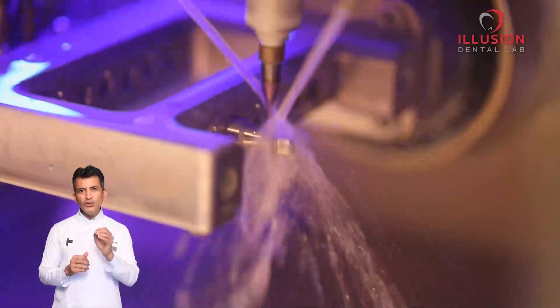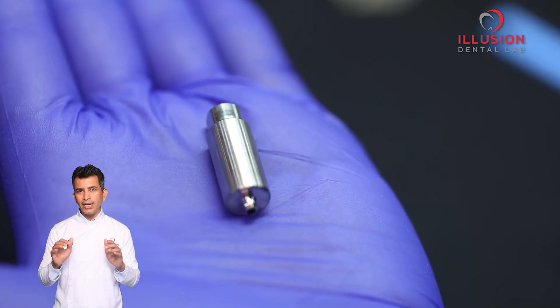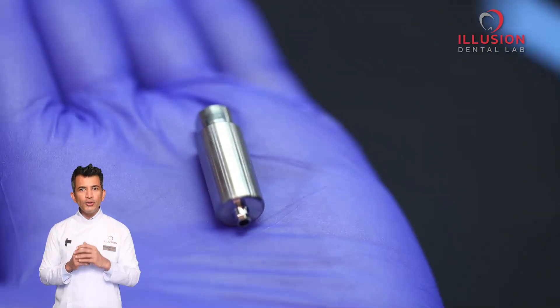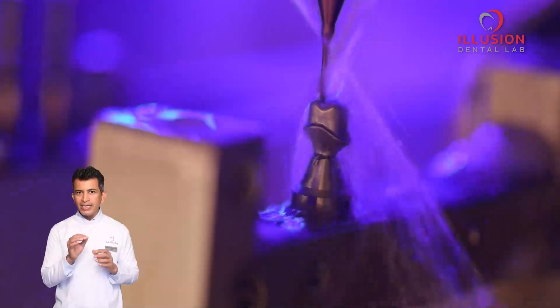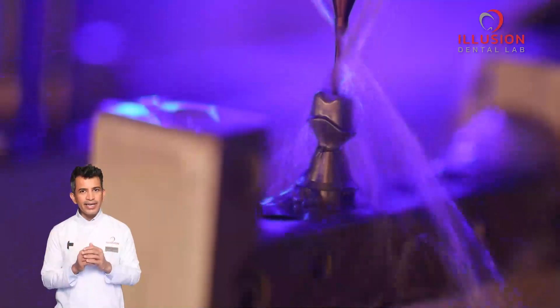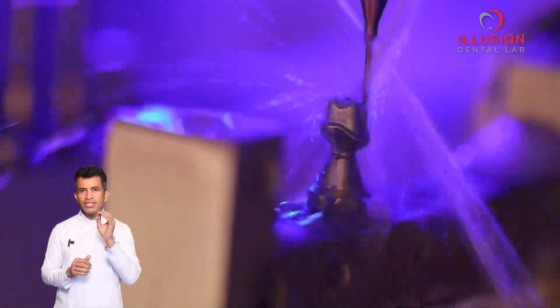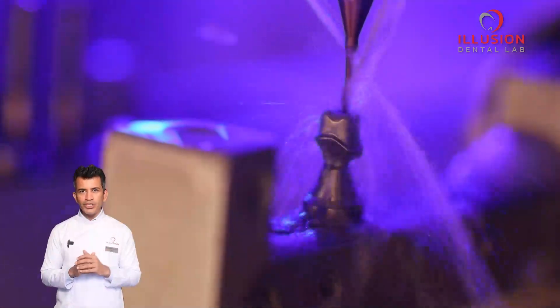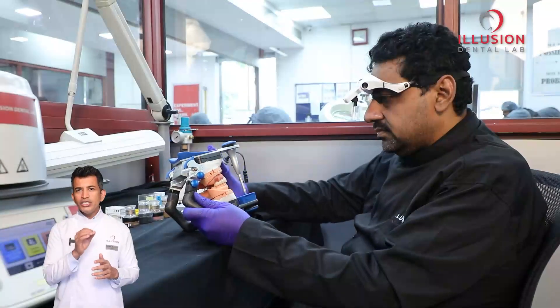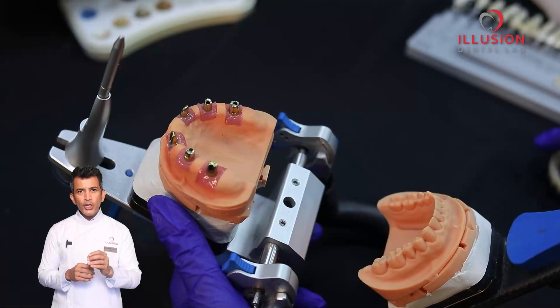Instead, we use pre-mill abutments from one of the world's best companies. Only the supra-gingival portion is milled in the lab as per the design, in a super precise manner using our state-of-the-art machinery.